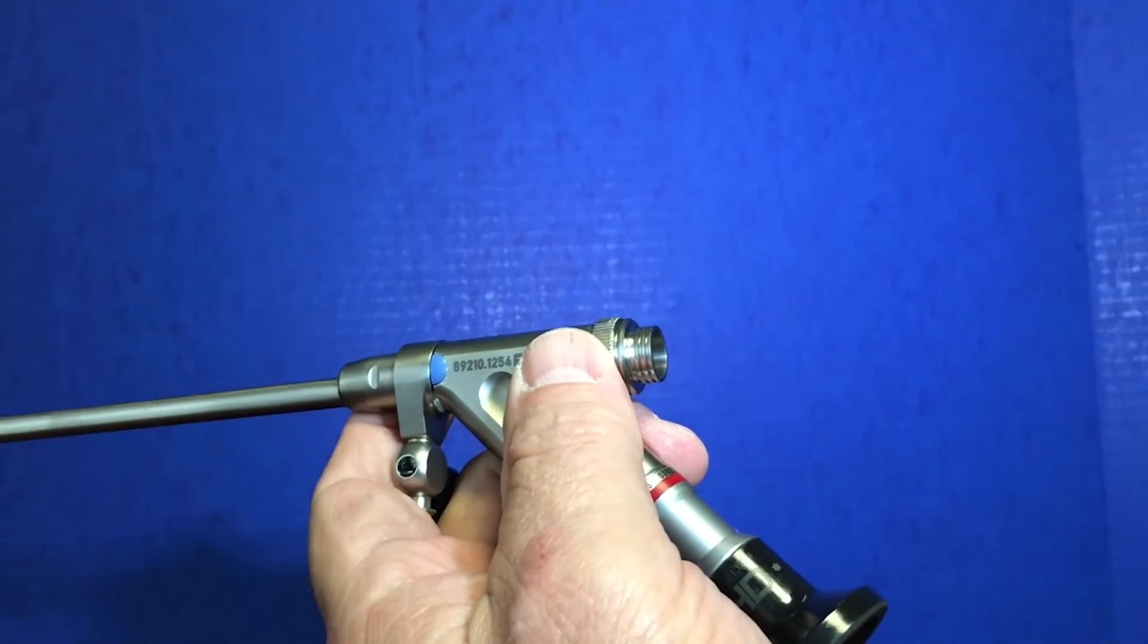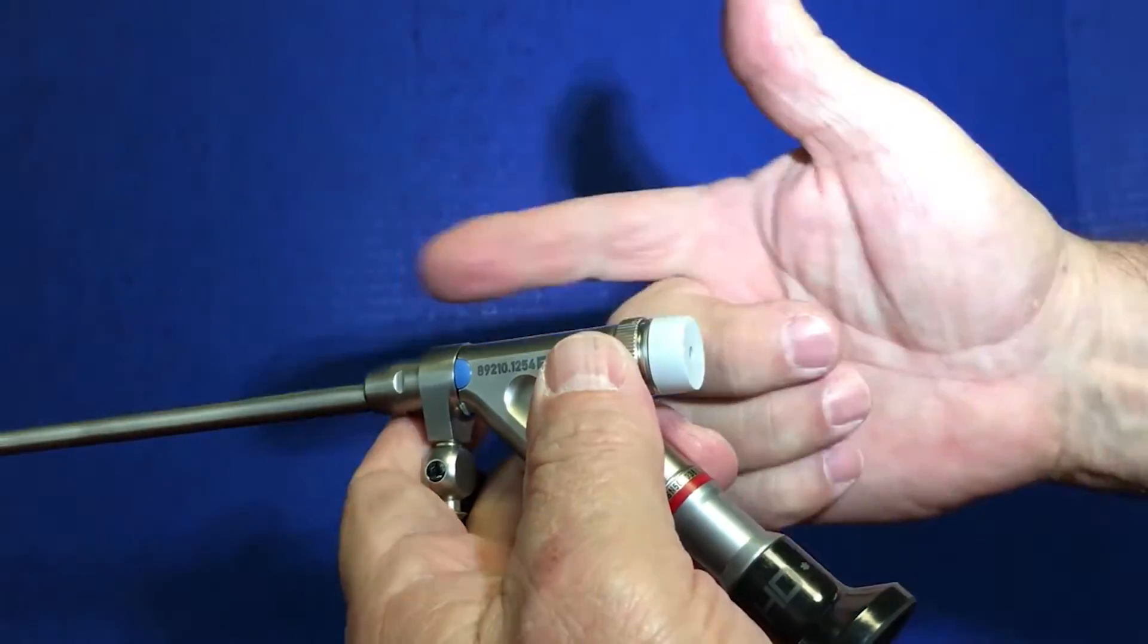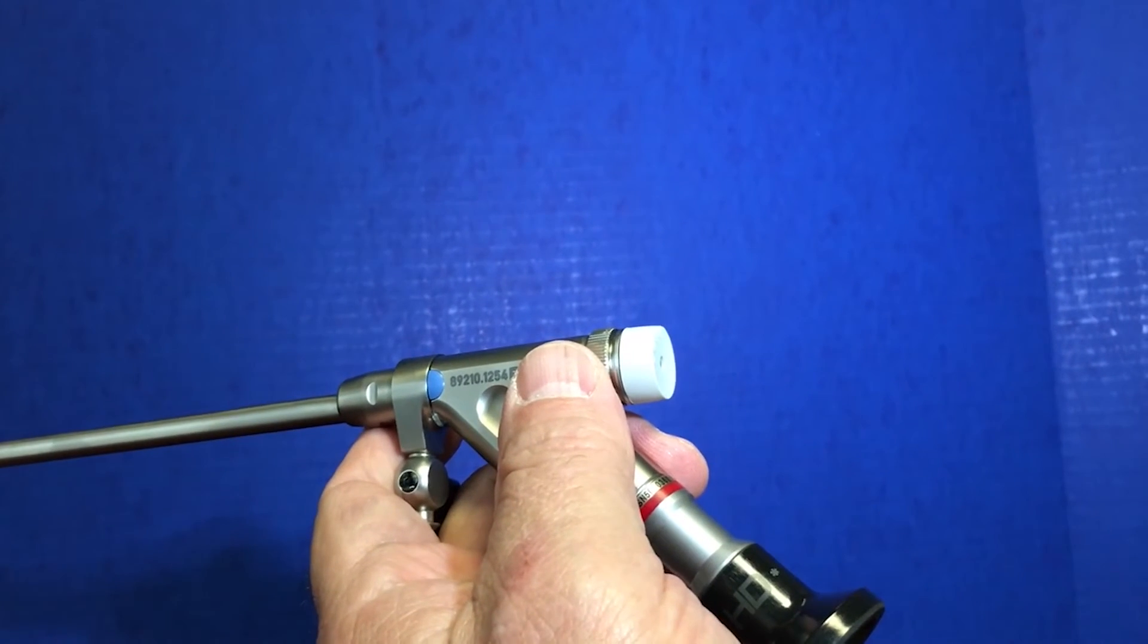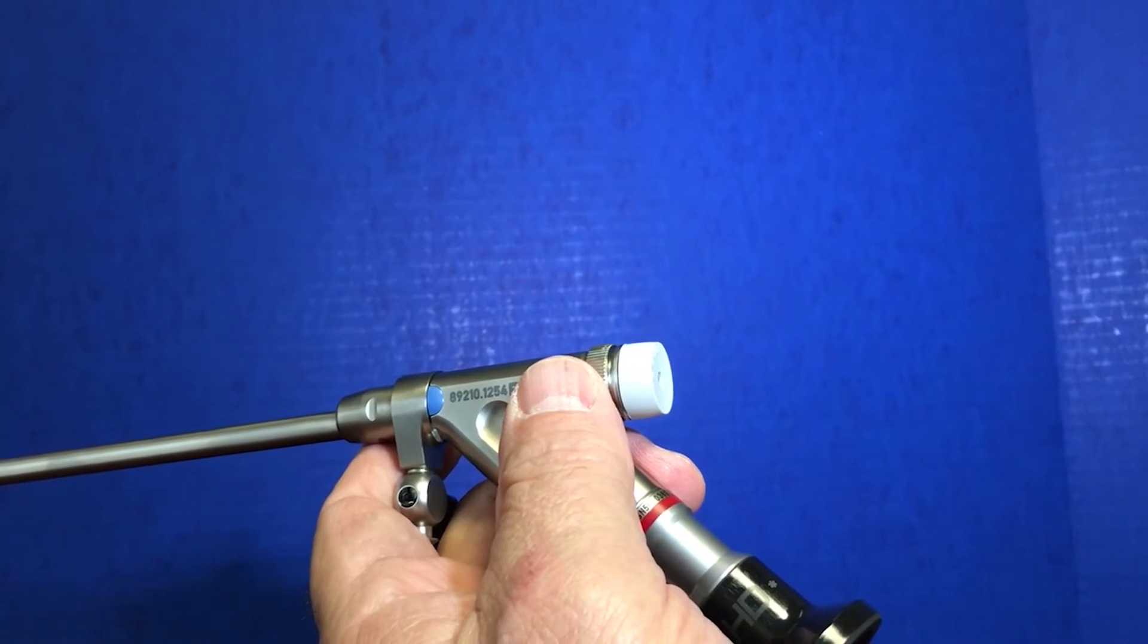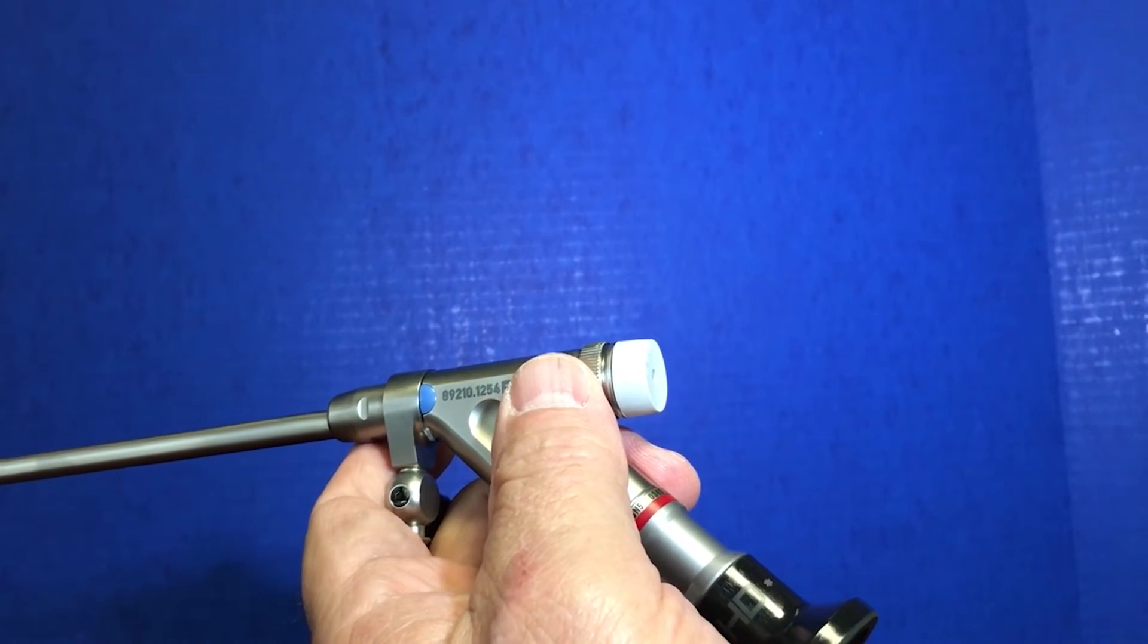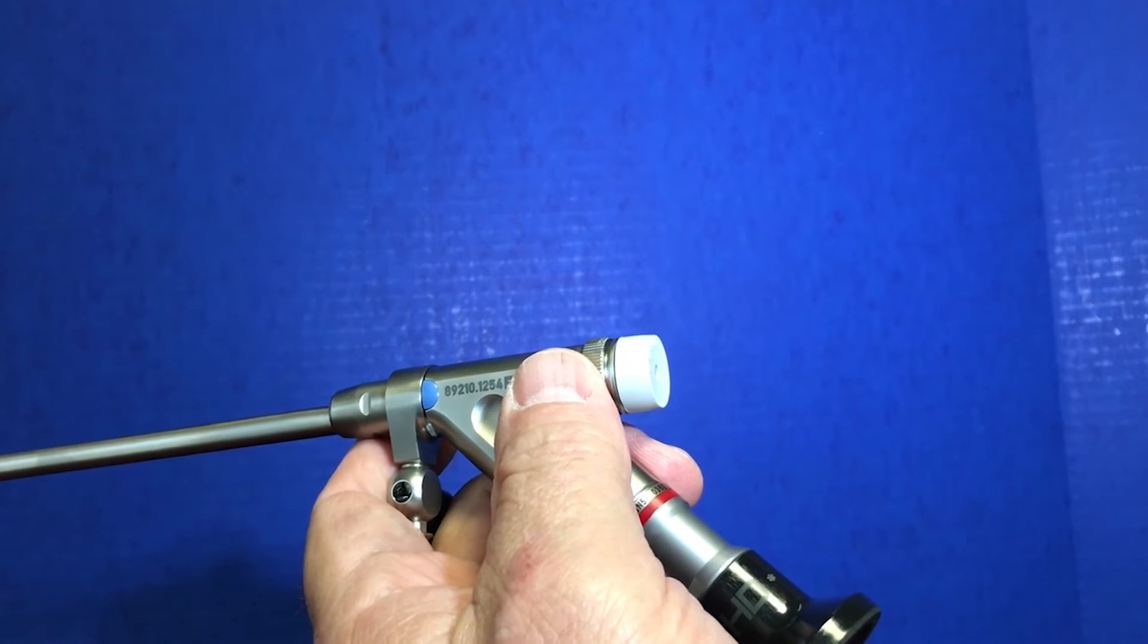So the attachment is placed and then a small rubber sealing cap, still allowing instruments to be passed through from one end through the scope. Now also keep in mind that there's three colors of these little covers to pass different sized instruments.